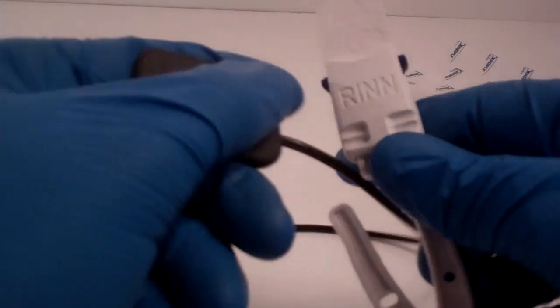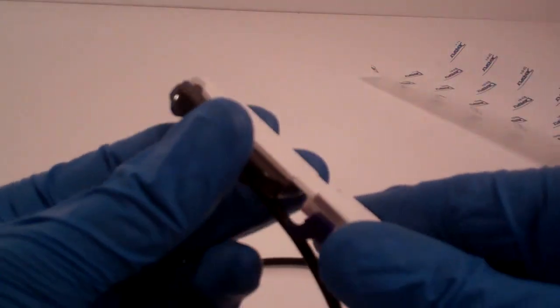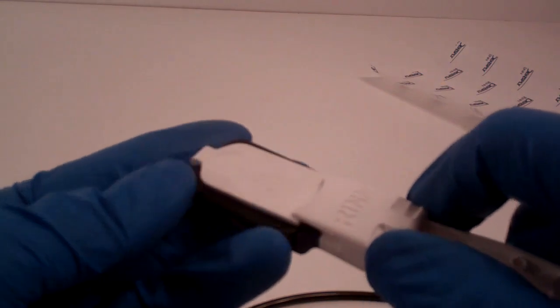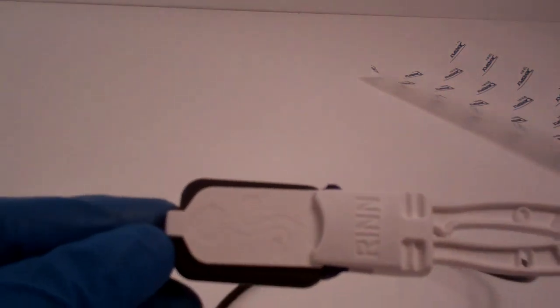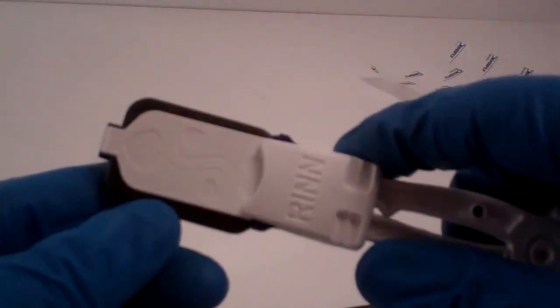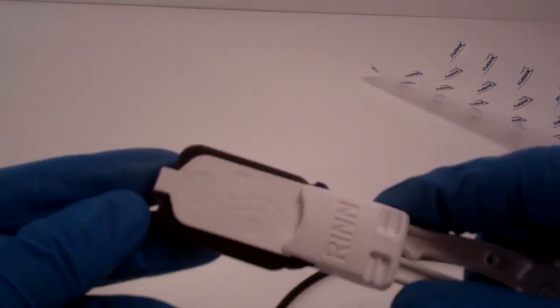For the interior, you would just close this grip down here. You're putting the active area against the plastic and sliding the locking mechanism up so it grips the sensor snugly. It's a friction fit. That'll work with either a size 1 or a size 2 sensor.